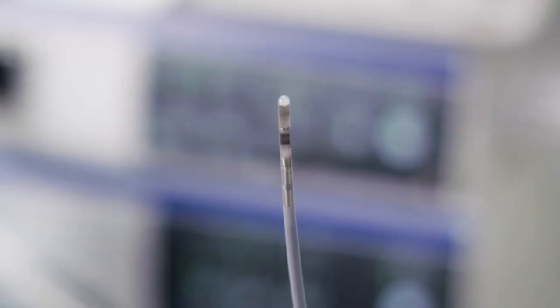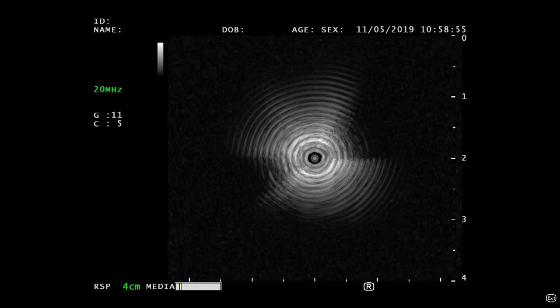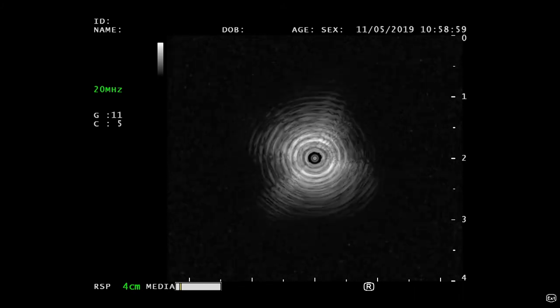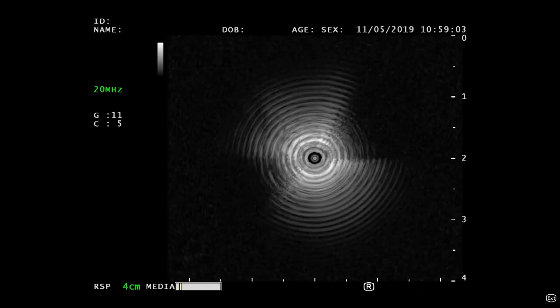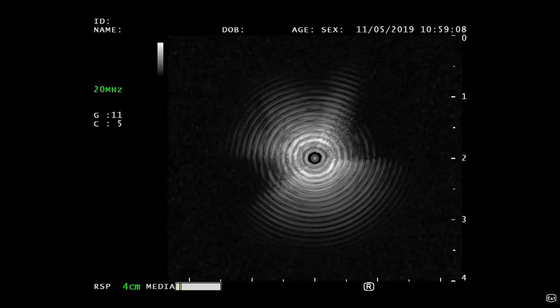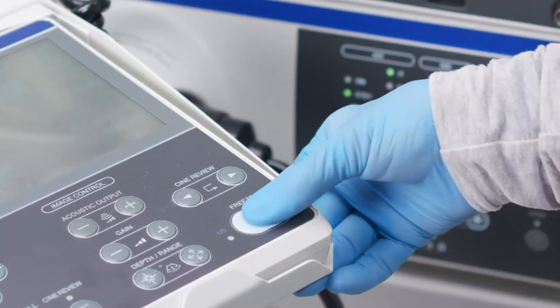Confirm that the ultrasound transducer is rotating and that a multiple echo image appears on the monitor when the ultrasound image is in real-time mode. Confirm that no abnormal vibrations or sound is emitted from the system assembly. There should be bright white rings in the middle of the screen. After inspection, set the probe to freeze mode by pushing the freeze button again.